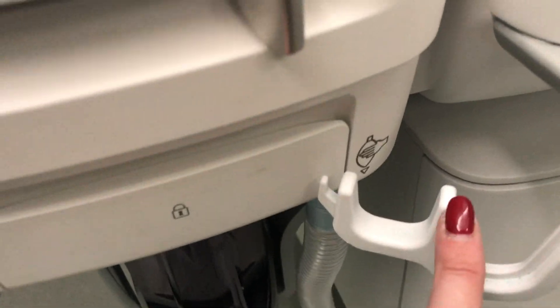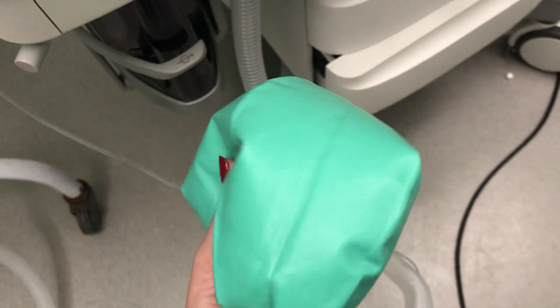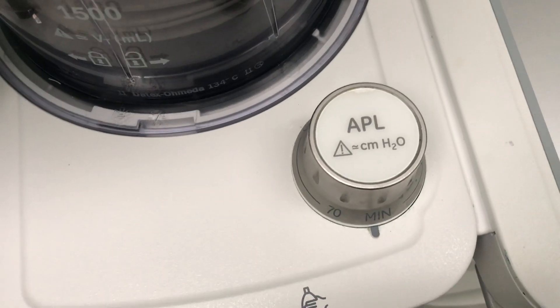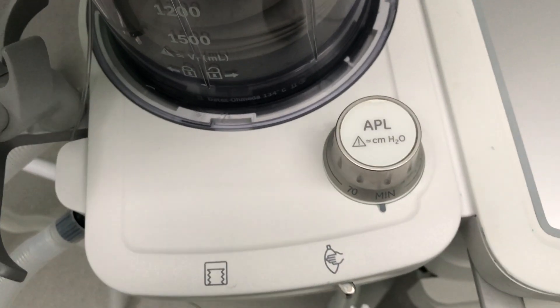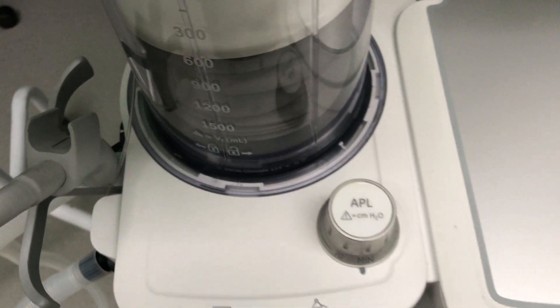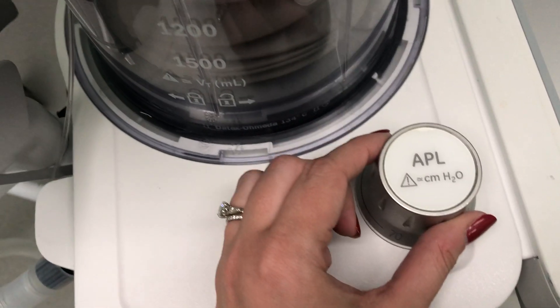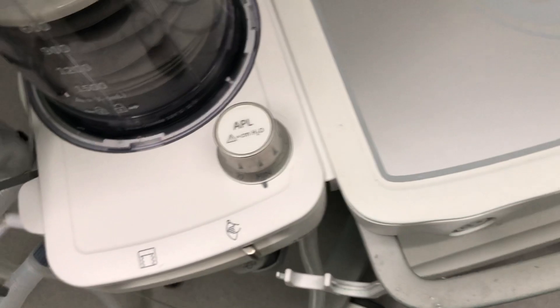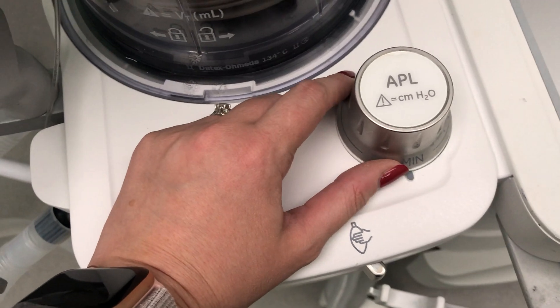Here you can also see the breathing bag connected via a limb. Here is the APL valve — the Adjustable Pressure Limiting valve.